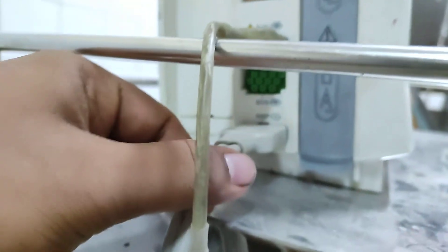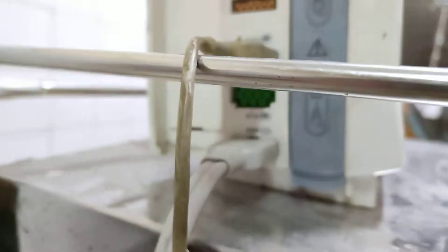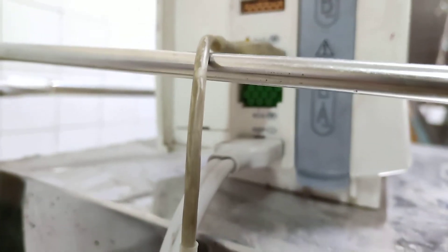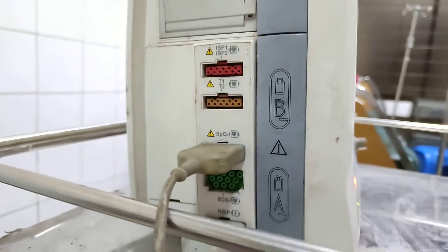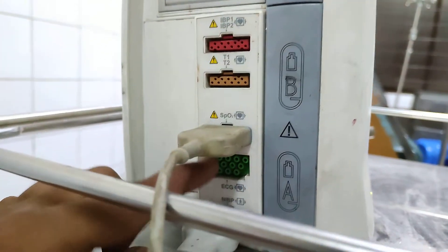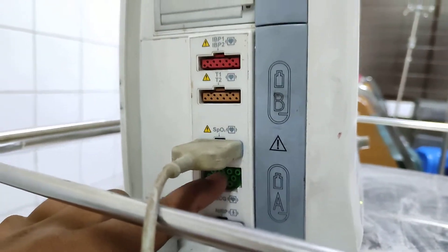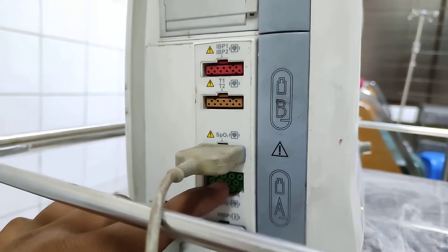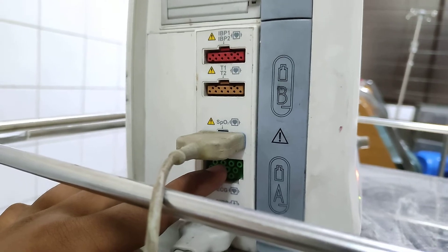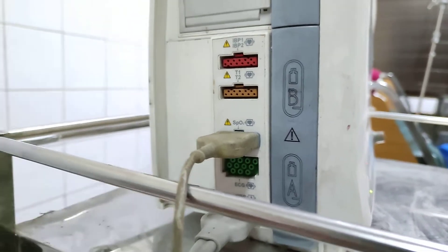It's the connection of NIBP. So here is the pressure. We have used this ECG port, and we can check ECG from the ECG lead.